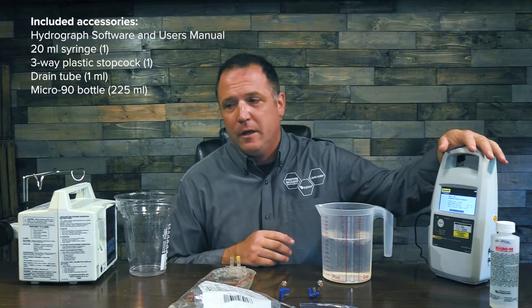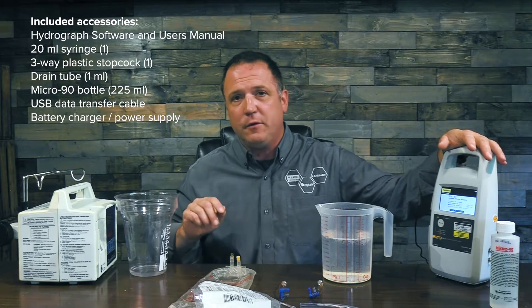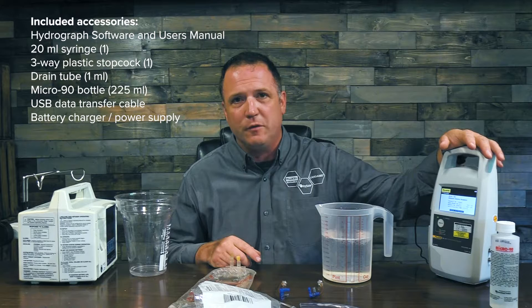Hello, I'm Justin Ross with Fluke Biomedical and RaySafe and we're back with our Fluke Biomedical Infusion Pump Analyzer Series. Today we're going to work with the Fluke Biomedical IDA1S and we're going to go ahead and hook up to an infusion pump and show you that setup and take a few tests, specifically a flow and occlusion test.